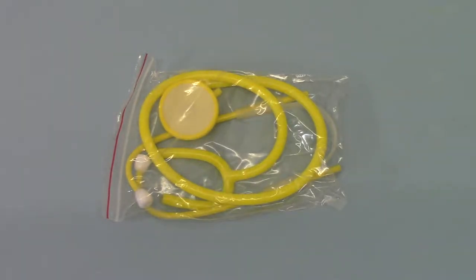Welcome to this product demonstration for the Valumed Single Use or Infection Control Lightweight Stethoscope.